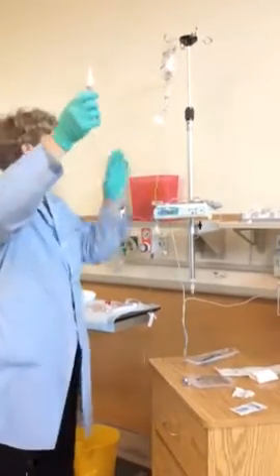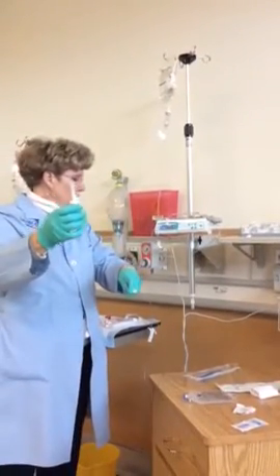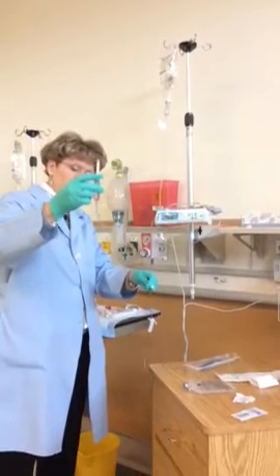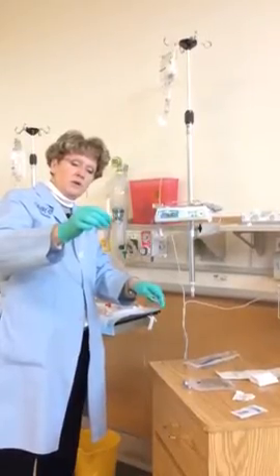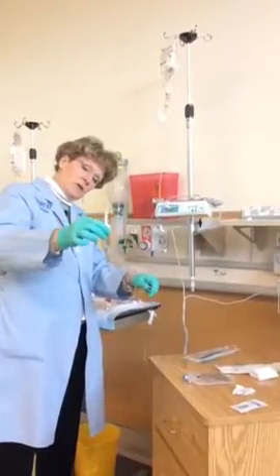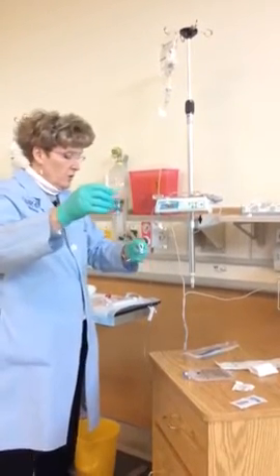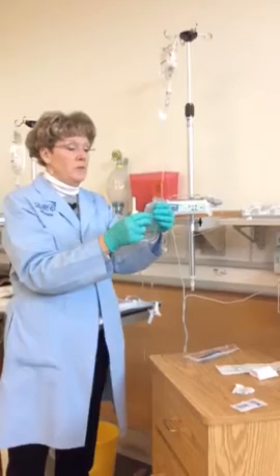Now I'm going to retroflush the primary or the saline back solution into my line. I'm going to open my roller clamp, holding the drip chamber below the level. Here comes my fluid. Just about to enter the drip chamber. In the drip chamber, and I'm going to take it up 1/2 to 2/3 full. All right, there's 2/3. So my line is primed, and now I'm ready to attach my IV piggyback.